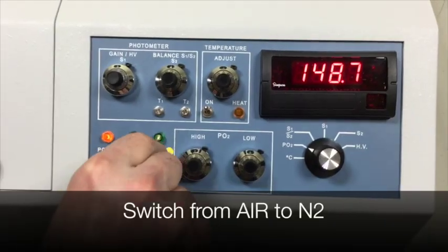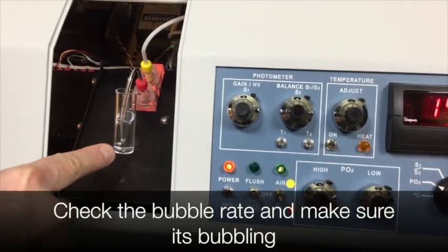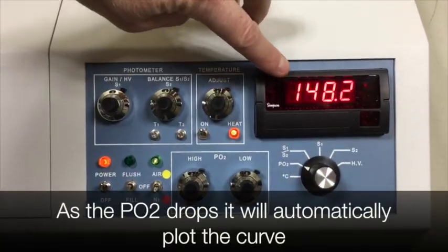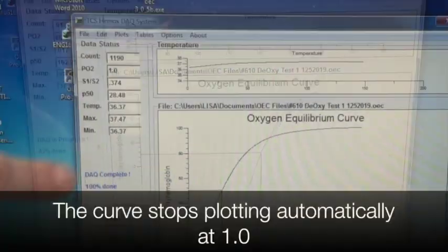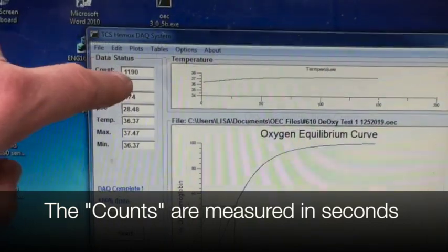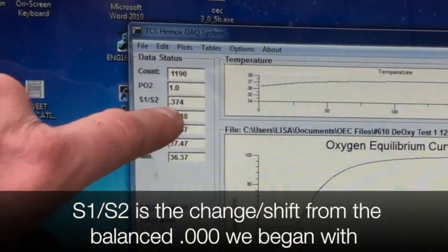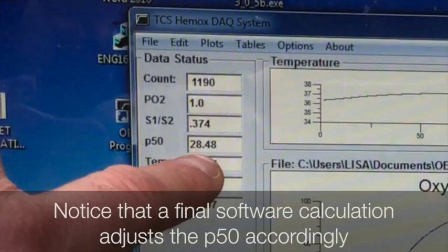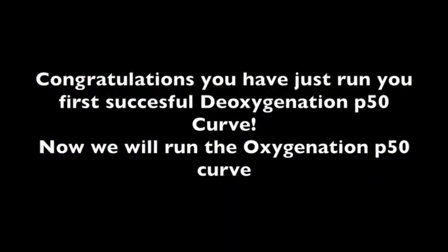Switch from Air to N2 or Nitrogen. Check the bubble rate and make sure that it's bubbling. As the PO2 drops, it will automatically plot the curve. The curve stops plotting automatically at 1.0. The counts are measured in seconds. S1 over S2 shows you the change or shift in the photomultipliers. At the end of the run, the software will adjust the P50 accordingly. You've just finished plotting your deoxygenation curve.